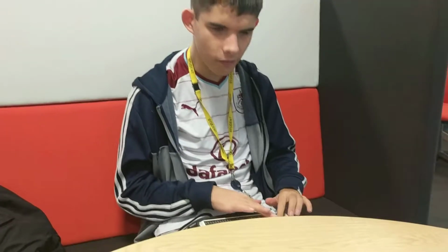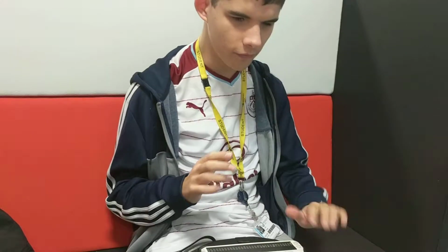So what I gotta do is make sure that my Braille Sense is in the program menu. Quick way of doing this is pressing function key 1, File manager, which it is. So now I've just got to press space until I hear it say Word processor, which I want to press enter on. And immediately I should be in a blank document. Top of document.